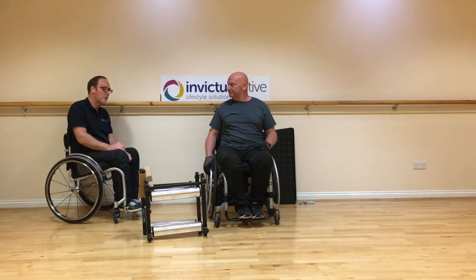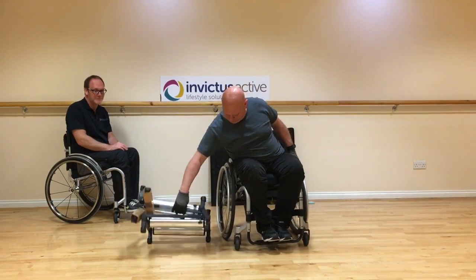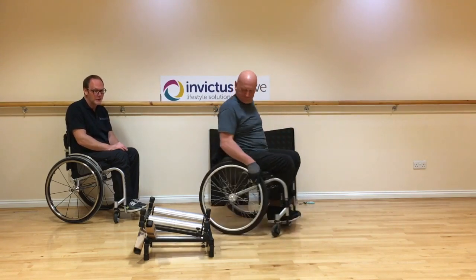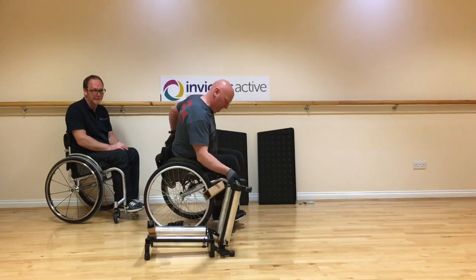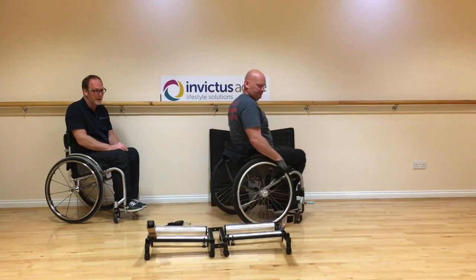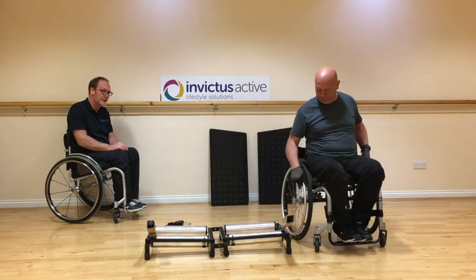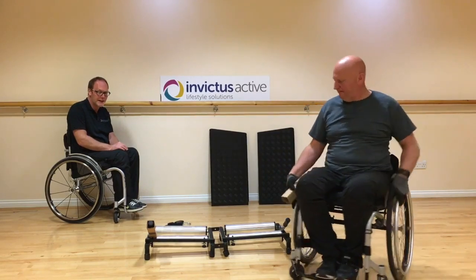Having removed the washers, the next thing you want to do is lay the trainer flat on the floor. Then slide the two cardboard tubes off the ends of the brakes and put those to one side — it's just packing, you won't need that anymore.